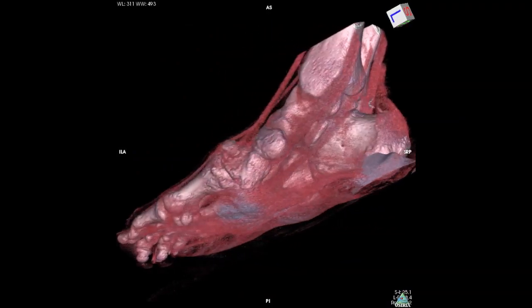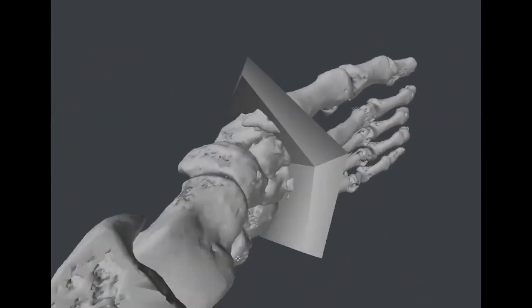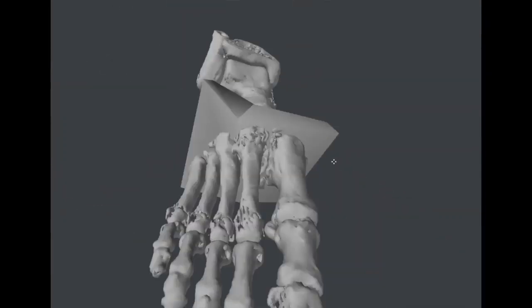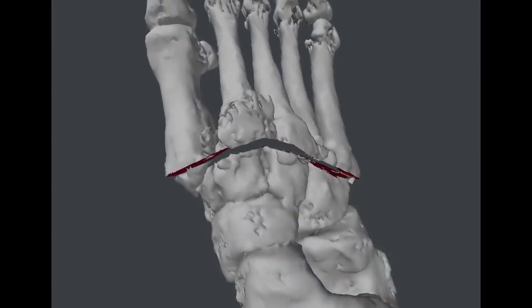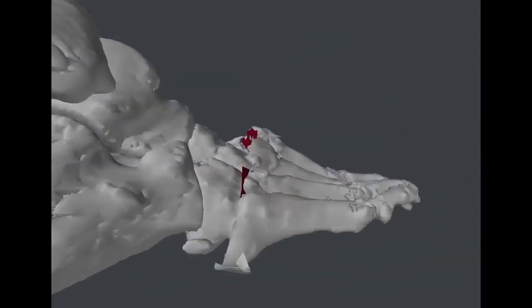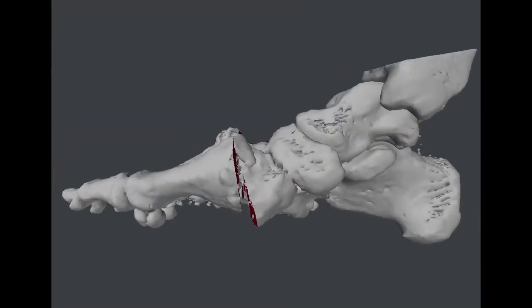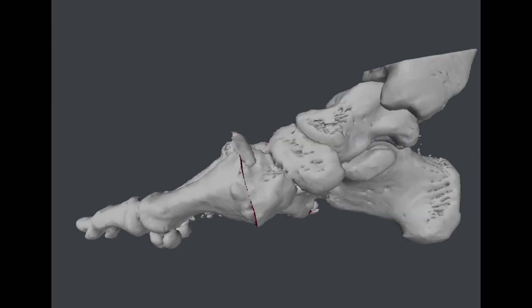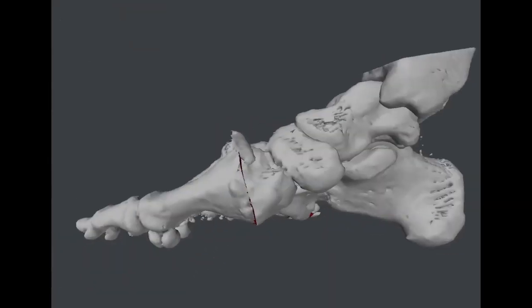This reconstructed data was able to be exported for further utility within a variety of CAM software applications. This enabled Boolean operations and test simulations to be rendered in order to simulate the optimal geometric resection and reconstructive correction needed for the patient. With the ability to view and simulate real-time corrective operations, surgeons were able to test several operative scenarios with undo functionality.